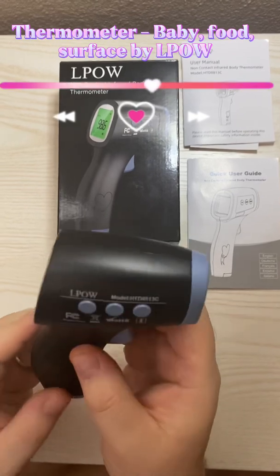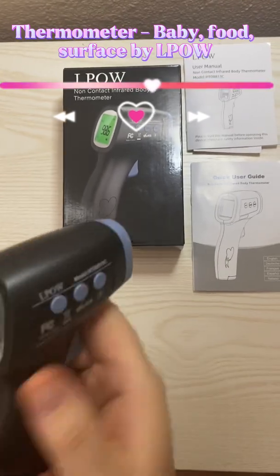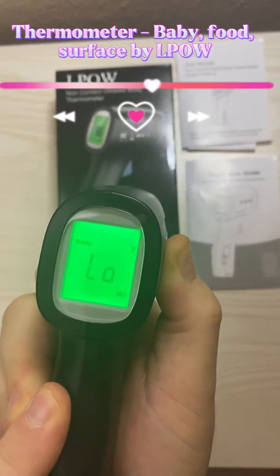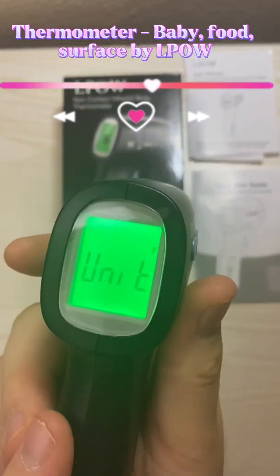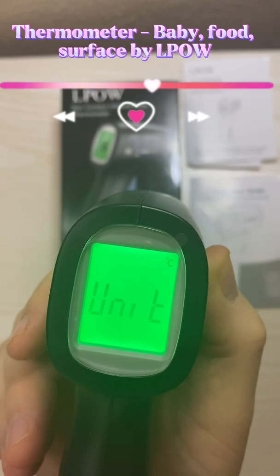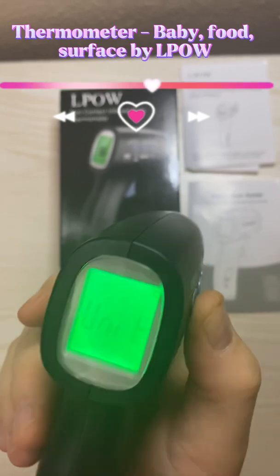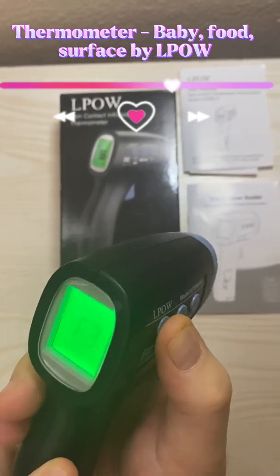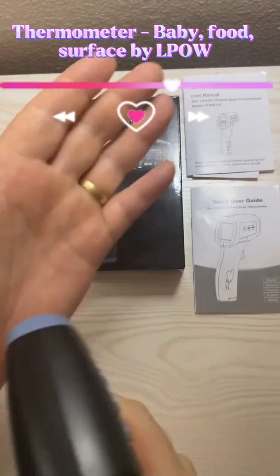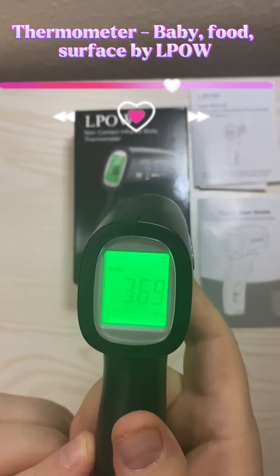I'm also going to show you how to make some adjustments. If you're using metric and want to change to Celsius, hold down the set button and you'll see F1 pop up. It says unit, and the F for Fahrenheit is blinking. You can adjust that using the memo button. There's Celsius — and I'm going to show you that real quick. 36.9, so there you go for Celsius.